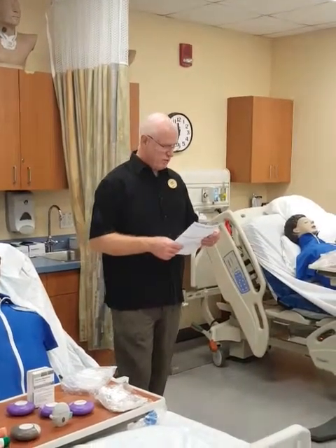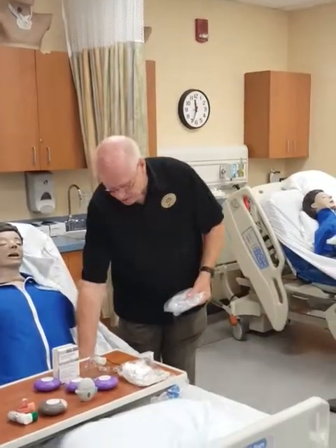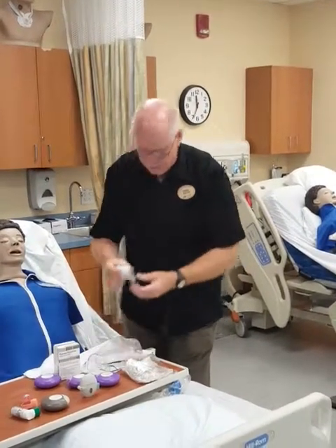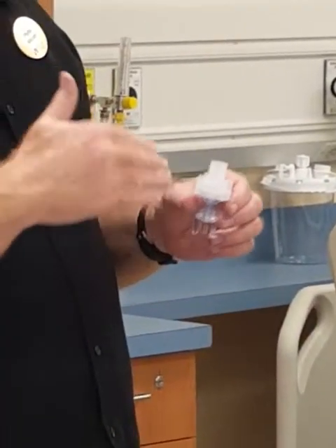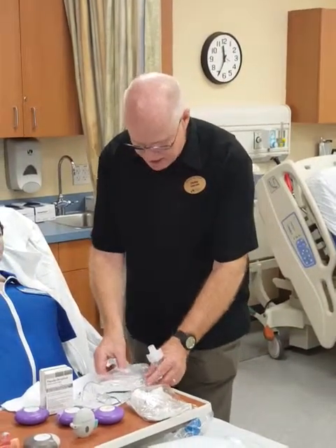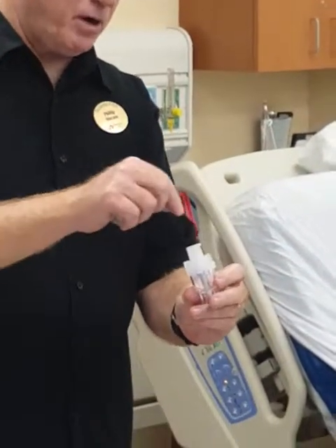Assemble the equipment — a small volume nebulizer with a mouthpiece and reservoir tube. It comes prepackaged. Some people call this a side arm nebulizer; that's an older term for an older design, but it means the same thing. The real name is small volume nebulizer. The medicine goes inside this medicine cup on top — some people don't take the cup off, they just pour it right into the top. And then there's a Briggs T-adapter right there.